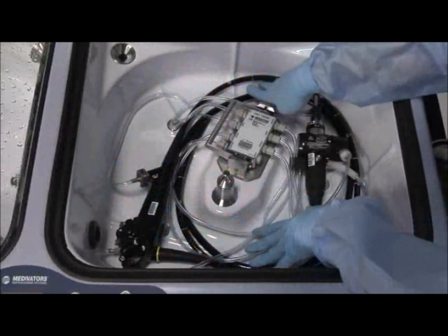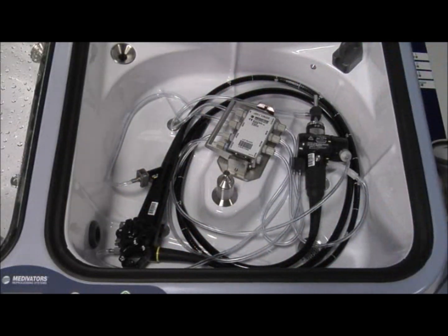Hookup connector tubing should also be positioned so that it does not raise and become caught in the spray arm or spray head, and does not cover the barcode.